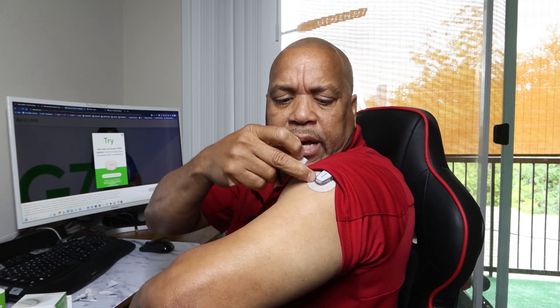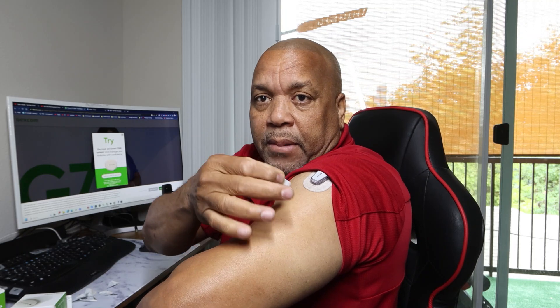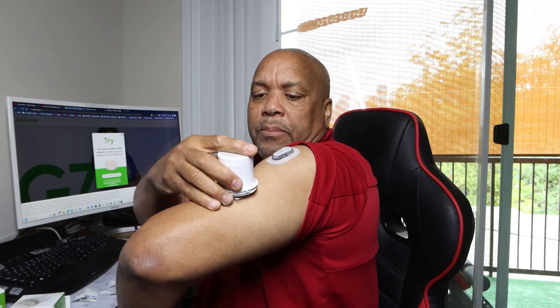After 10 days it does give you about 12 extra hours, so it gives you time. Here we go — we have our wipes, just going to clean the area right there. You can see I have my old one there which I have to remove. I can restart this one, which I plan to do. I'm going to unscrew this — if you look deep down inside here there's a small needle. You can see the needle, but you're basically not going to feel anything.